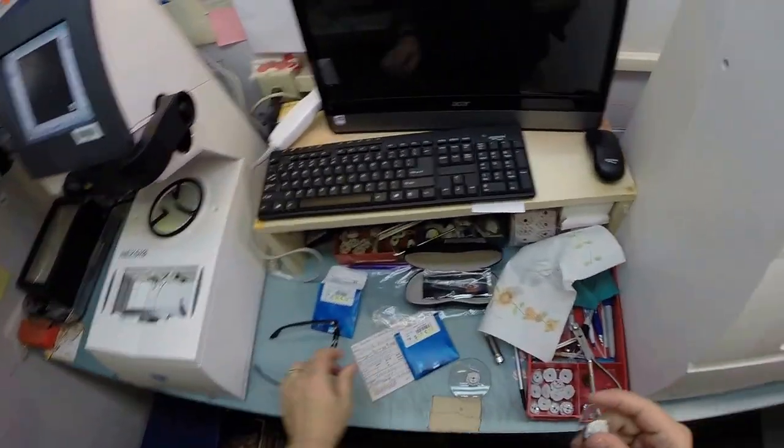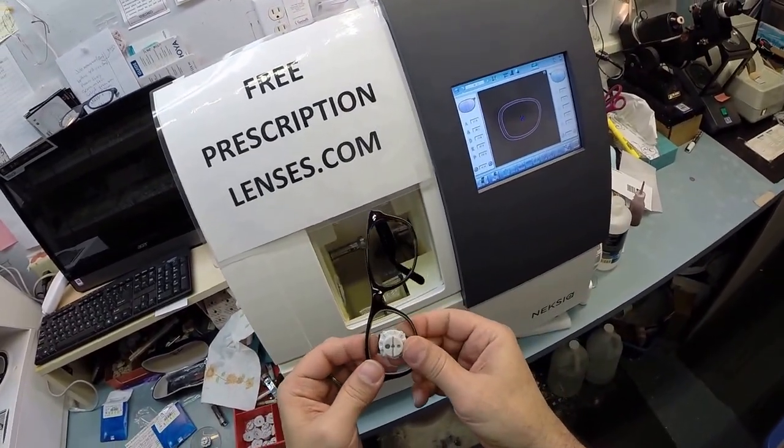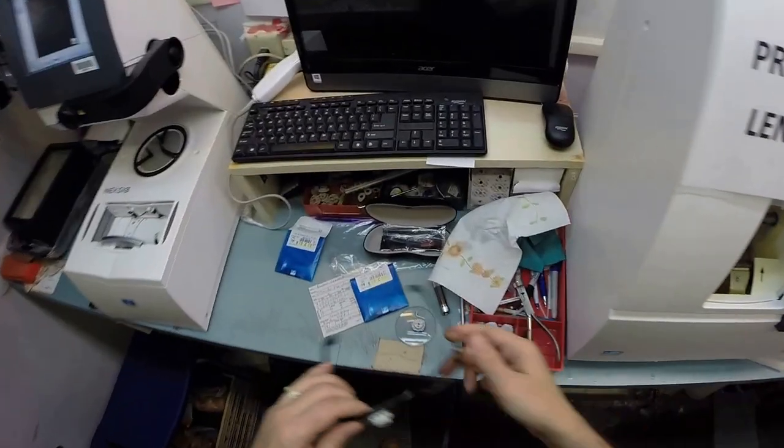I work a hundred hours a week to ship everything. I'm gonna tuck the lens in at the outside corner with my thumbs. I push down at the nose and it snaps in.